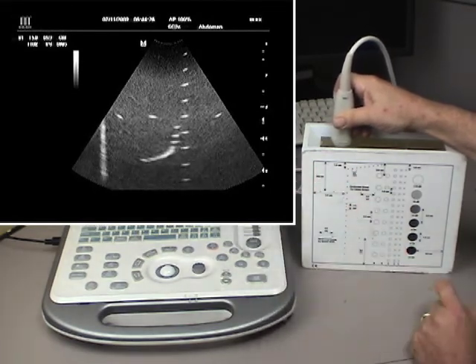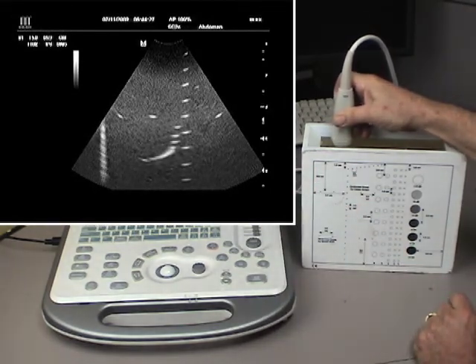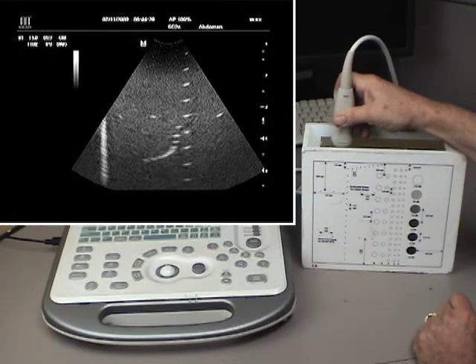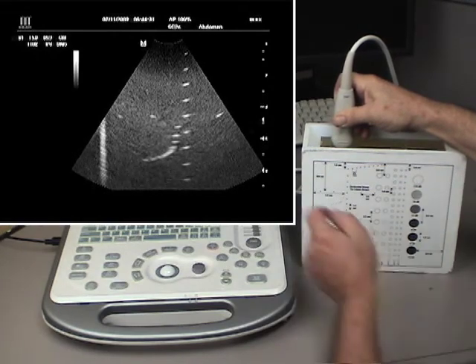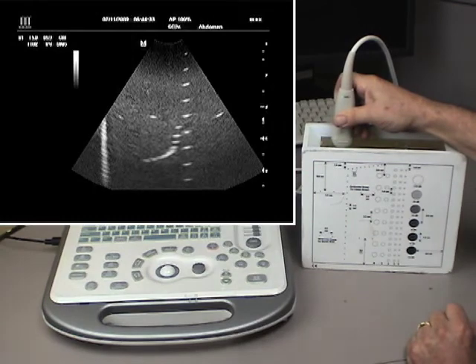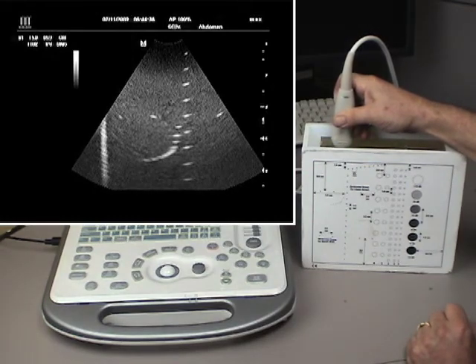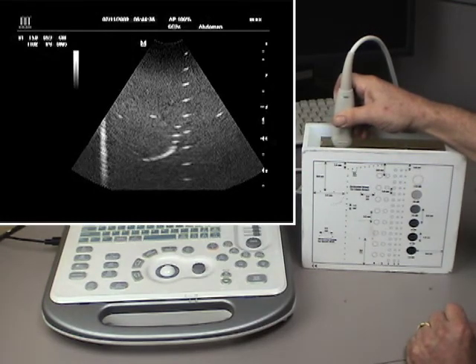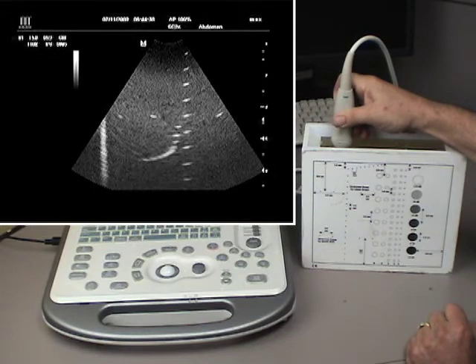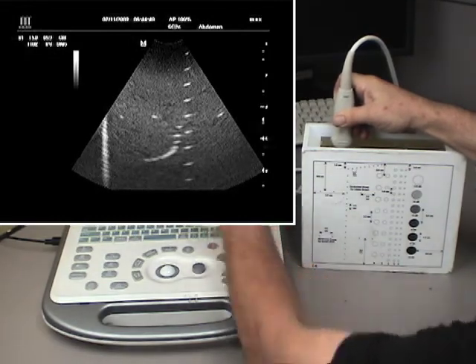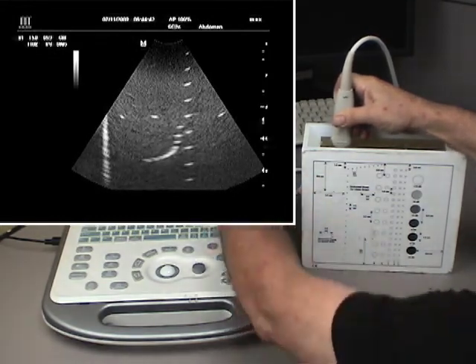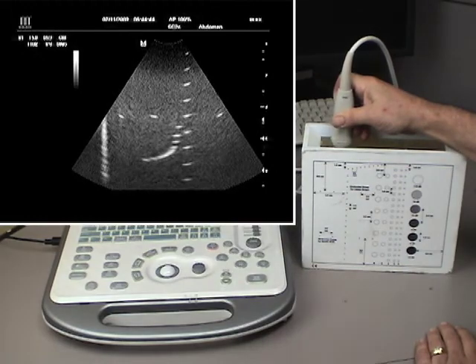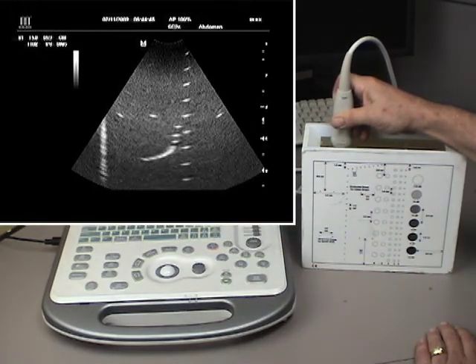And this is what you're looking at. That's not good or bad. It's a function of the system and transducer combination, as well as things like focus and depth. What you would do is take a photograph of this, and over time, you'd be able to tell if that image is staying the same, if you're losing resolution in one direction or the other, or even if you had dropout along the area somewhere.